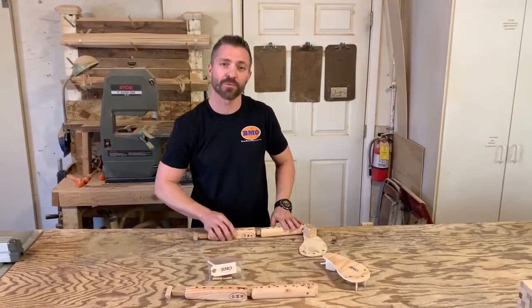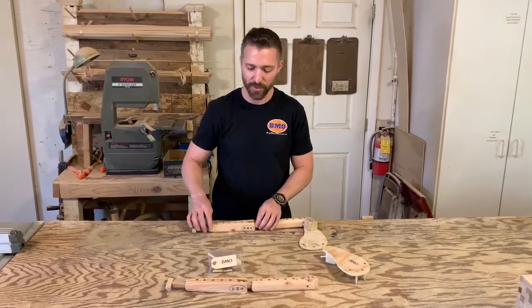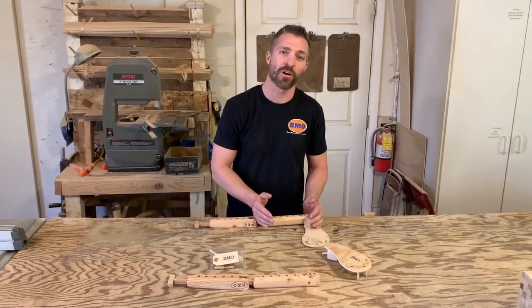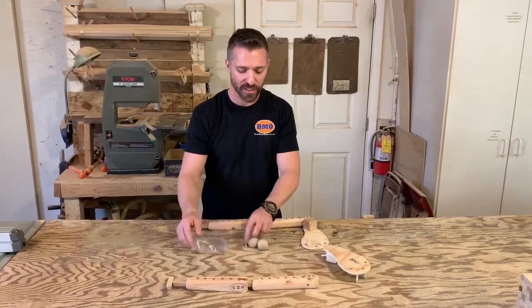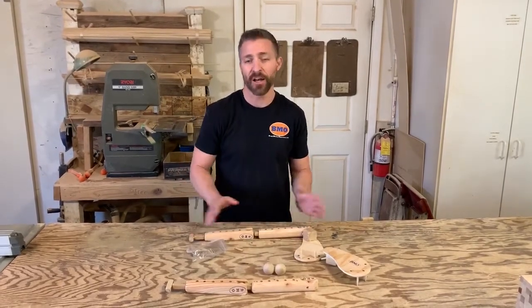The rest of the replacement is just like the upper extremity that we've already discussed. This can work with the full upper extremity — the UEP — or with the humerus only, what we call the P-UEP, the proximal upper extremity prosthetic. Out of your accessory kit, all you're going to need is your pins. You don't need the humeral heads. And then you're done.